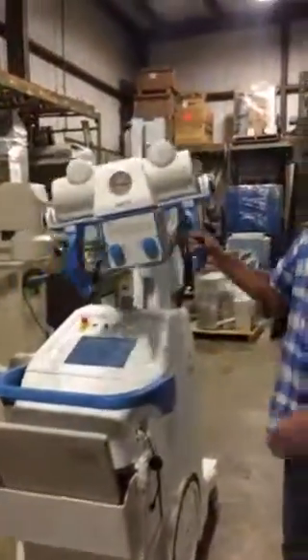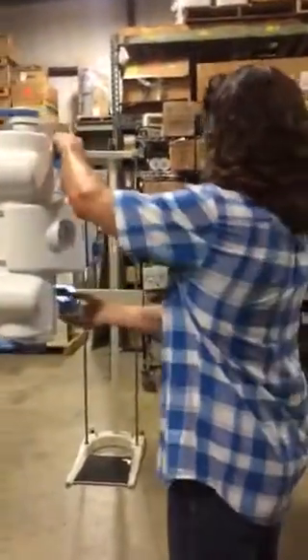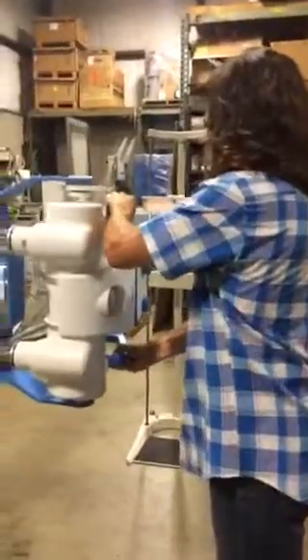The portable disconnects. You line up your patient for whatever exam you're going to do. You would go over here and pick — in this case, we're going to shoot an abdomen phantom or a lumbar spine phantom. So I'm going to pick a lumbar spine.